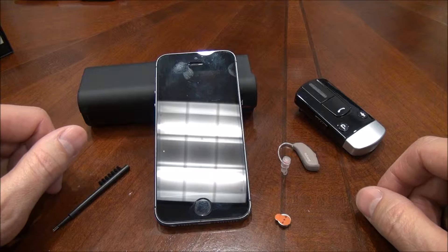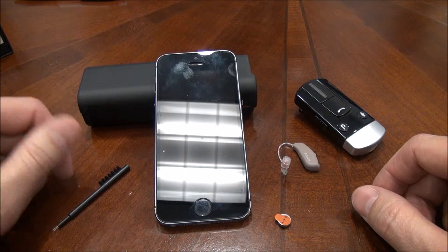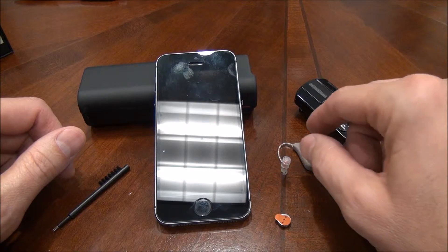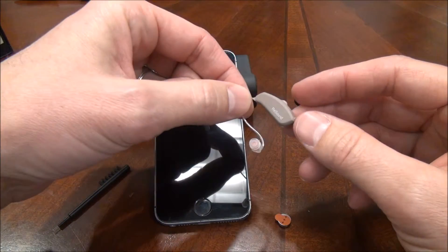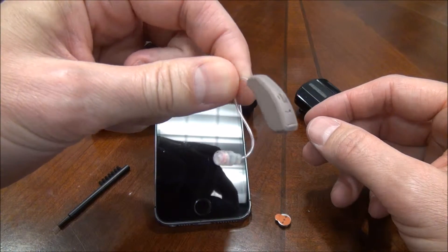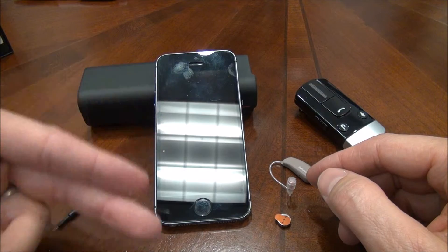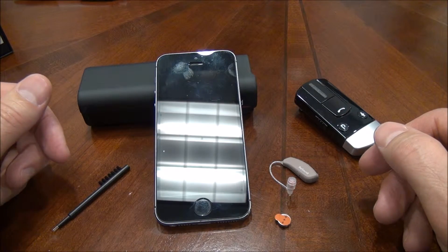This is Dr. Richard Lukengay and today we're going to talk a little bit about battery life and how these batteries work with your hearing devices. You can locate your hearing device — in this case we're going to be using one of these small behind-the-ear devices. We call these smart devices because they do a lot of really great things where they can talk to telephones, cell phones, assistive listening devices, etc.